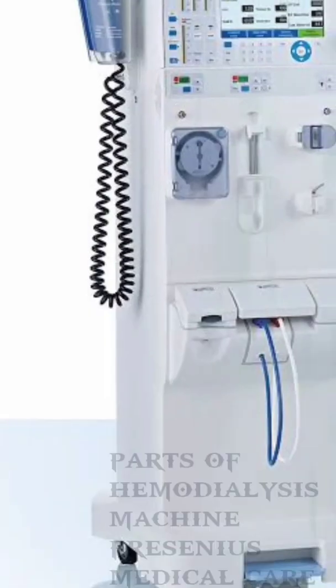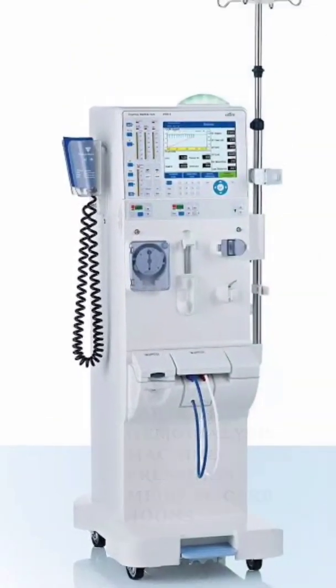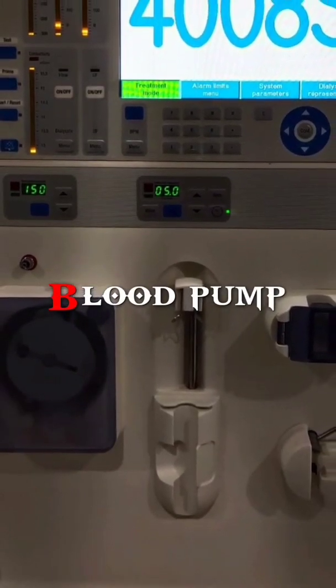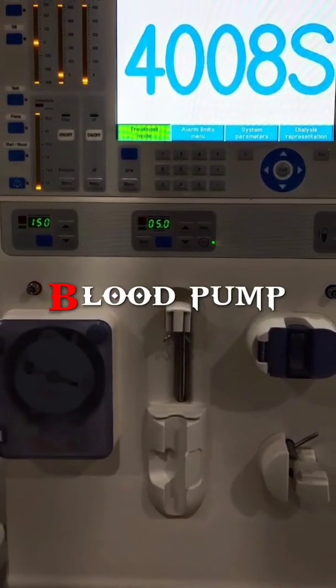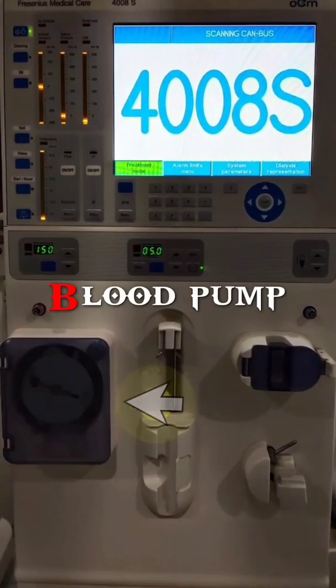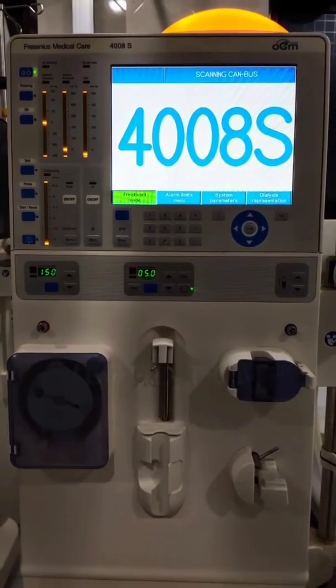The second discussion is about parts of the hemodialysis machine. Number 1, the blood pump. The blood pump is used to drain blood from the vascular puncture site to the dialyzer. The blood pump is usually located between the arterial pressure monitor and the dialysis solution monitor.